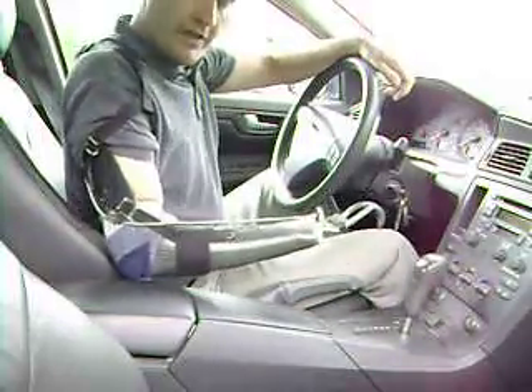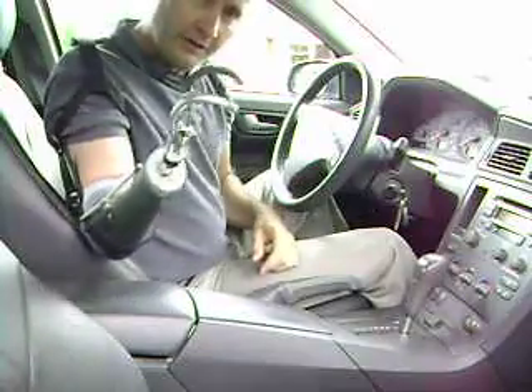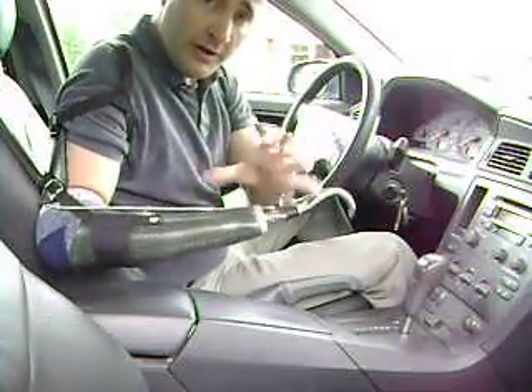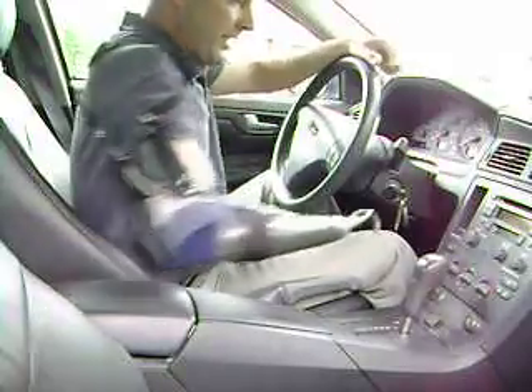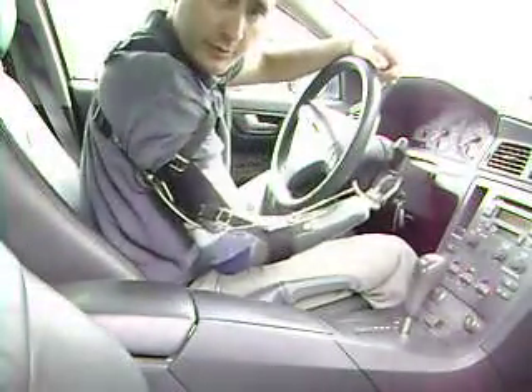Take the hook out. One of the worst things about having a prosthetic hand is that you've got finger action, but you don't have wrist action that's controllable at all. So you can't just grab hold of the key and turn it in any appreciable way.